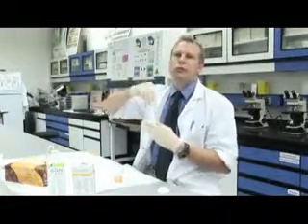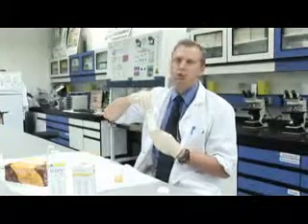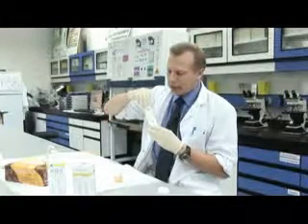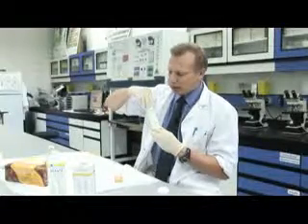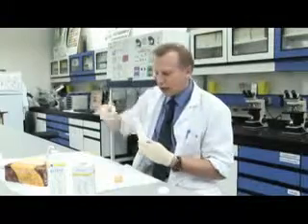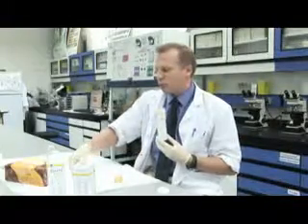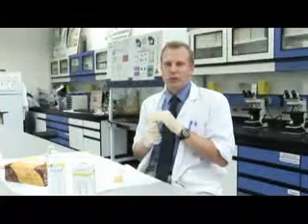So in this case, this person has some bleeding into the urine, but they don't seem to have infection or diabetes. And you might do some more tests on them to see where the bleeding is coming from, but it just gives an initial indication. Sometimes we bleed a little bit in our urine if we've been exercising very hard, maybe run a marathon or something like that, and that's not unusual. But if there's a very large amount of blood, then we've got cause for concern and we'll do further tests.